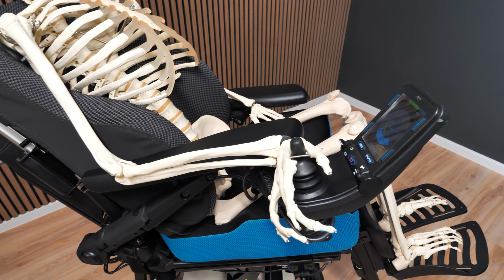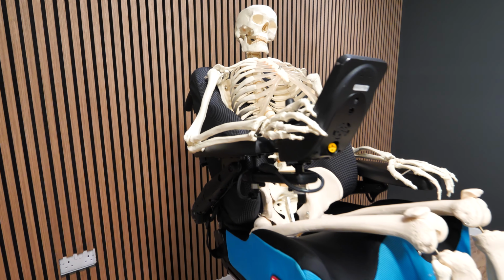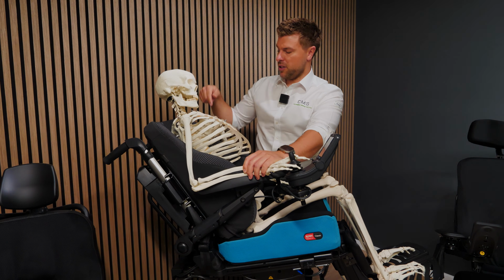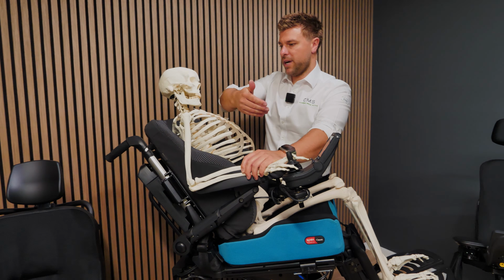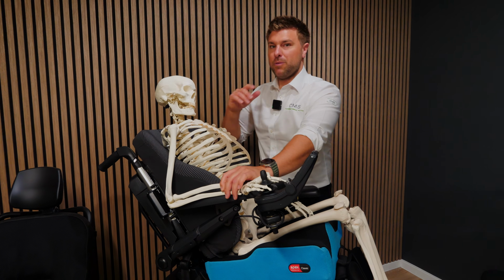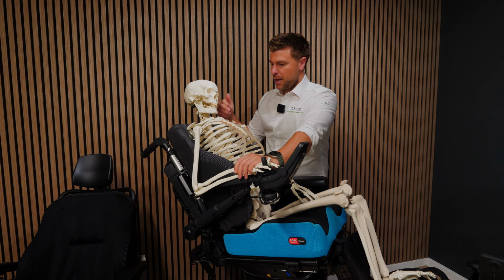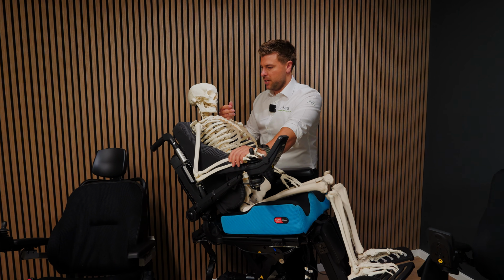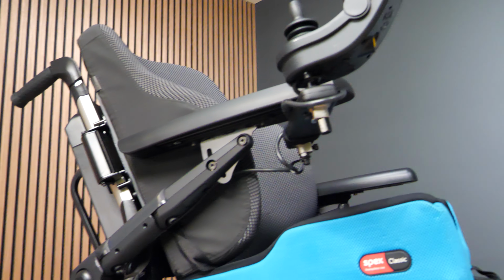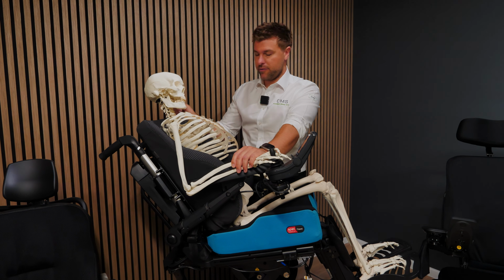In the same way, the rotation would be the opposite. I'm just going to bring it out so I can demonstrate. What would happen if it was further back? You can see that the shoulder starts raising, and the rotation would be the opposite way around. So rather than coming forward on the right-hand side, we've gone back on the right-hand side, but forward on the left-hand side. These could be really subtle changes, and you won't necessarily notice them immediately. But you'll get used to a certain position, and your body then tries to balance and correct it, which has more long-term effects on how you posturally sit in your chair and what your posture will look like moving forward as well.